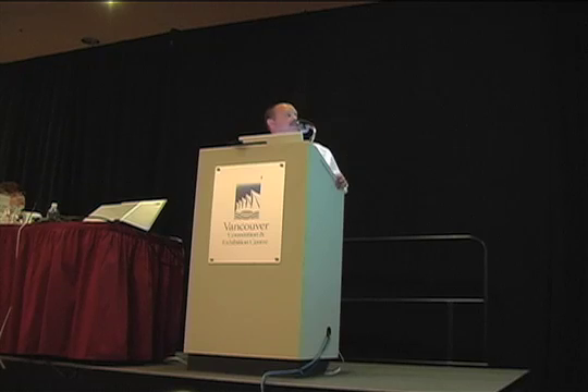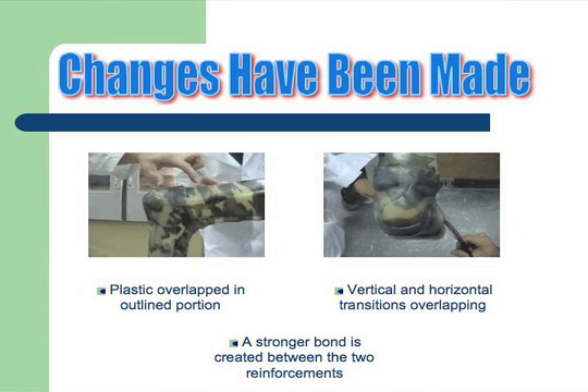I'm going to go over this again. You can see how well we push the plastic in — we want to overlap that a bit so we get a good, strong bond.